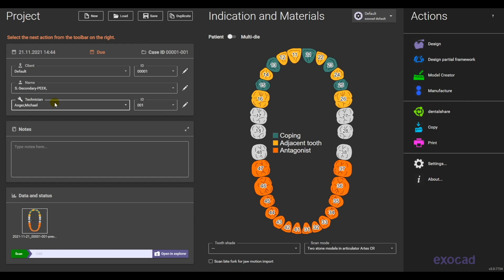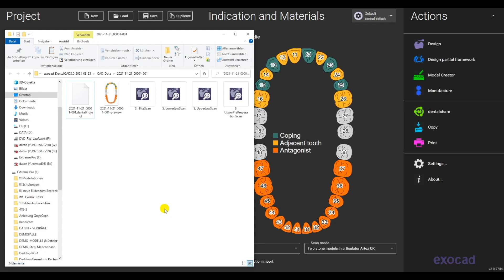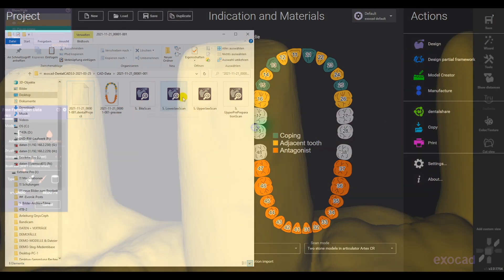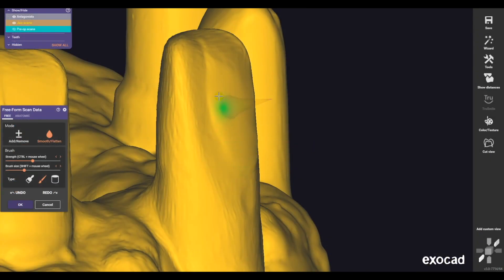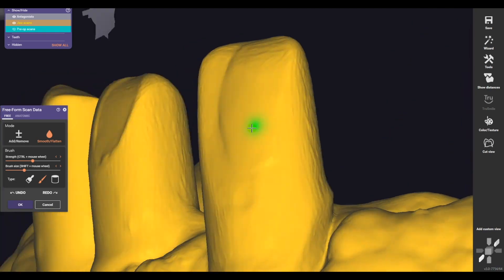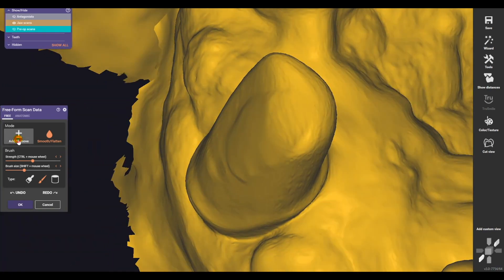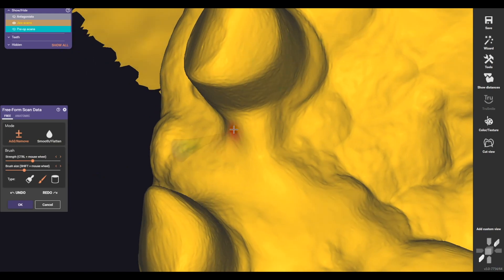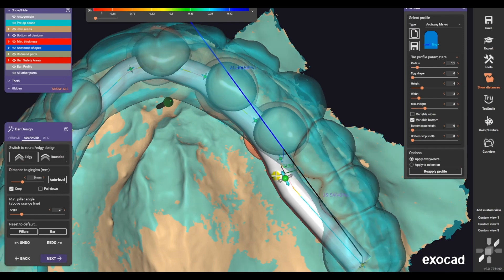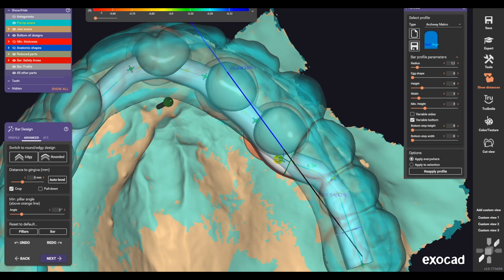So we have got mouth scans, and first of all we have to check the scans and how they are. We have got the bite scan. I think this is much better, and then with add and remove I remove this area here. Now adjust the bar below the T's.